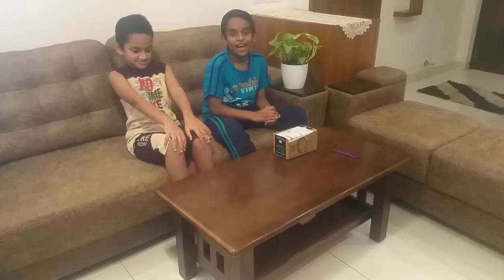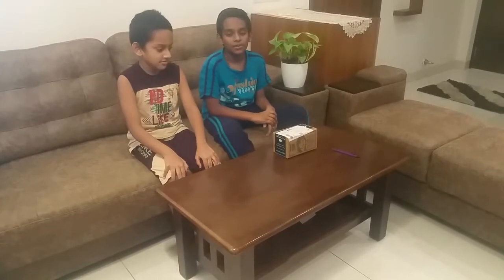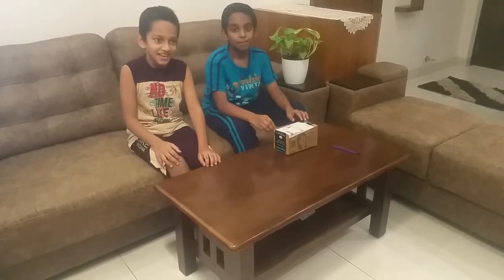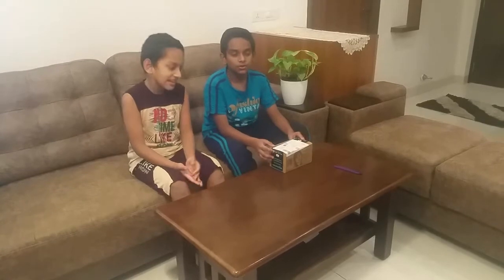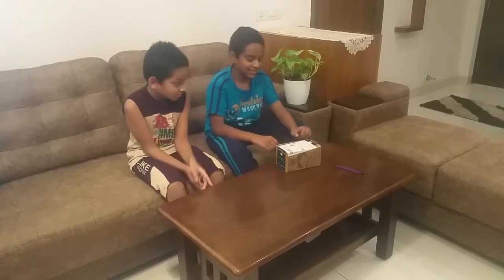What's up guys, this is Vialozo and Angela, and we are from Anoeso. Today we are here with the unboxing of the K-Life FTP102 Pulse Fingertip Pulse Oximeter. This fingertip pulse oximeter is used to know the oxygen level, pulse, and perfusion index of a person. Now let's unbox it and see.